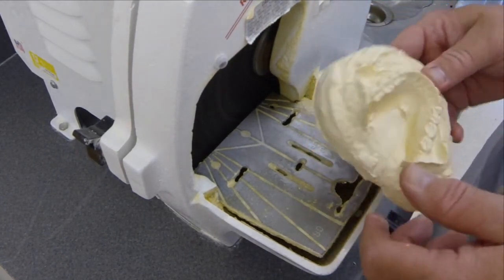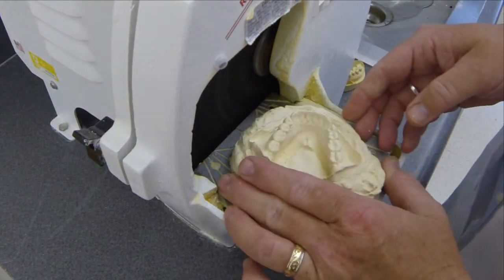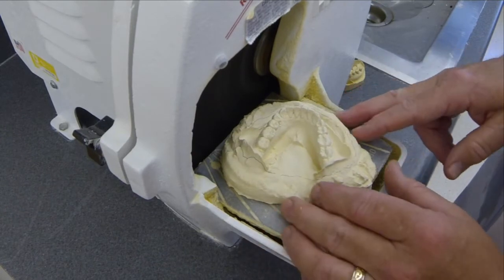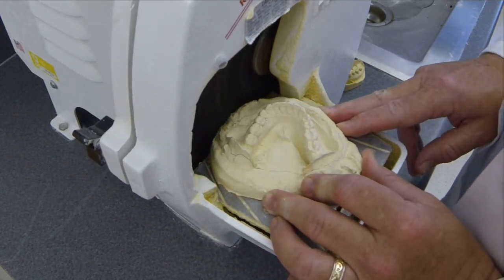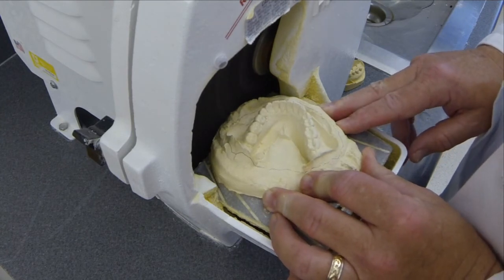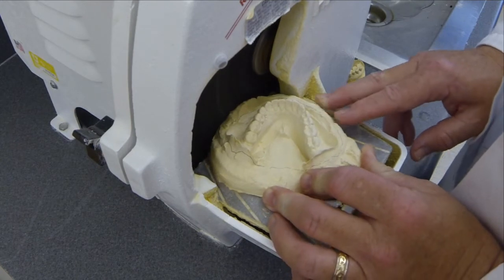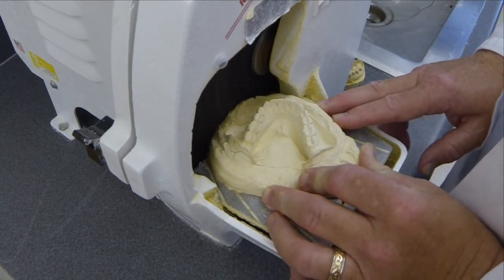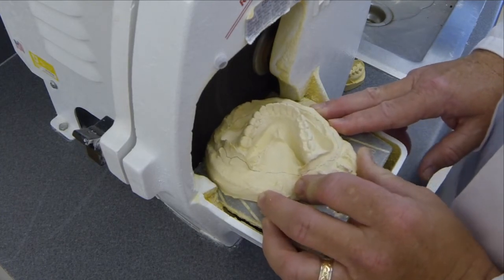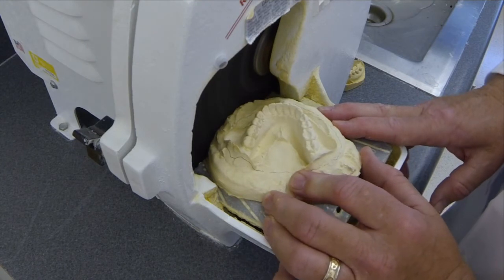With the lower model, we already have the flat surface, so now we just need to work on getting the planes. And in this case, we're going to start with the narrowest area so we can trim it. And I estimate this will take about 10 minutes. It's important not to push hard on this blade because they have been known to break.